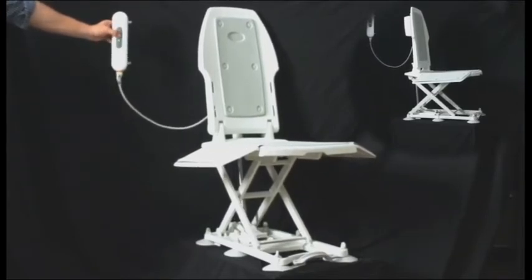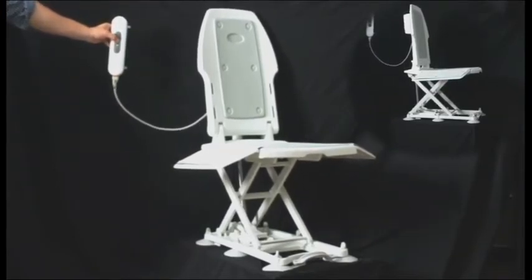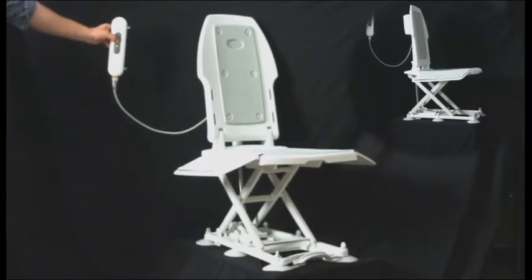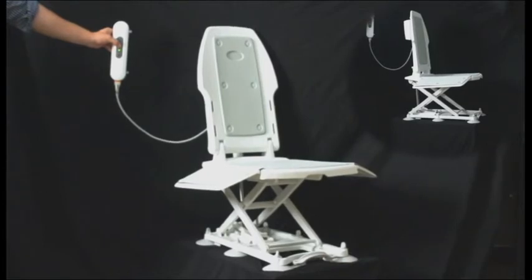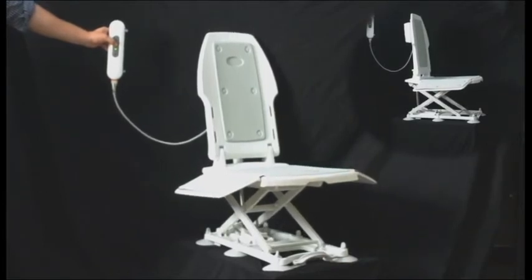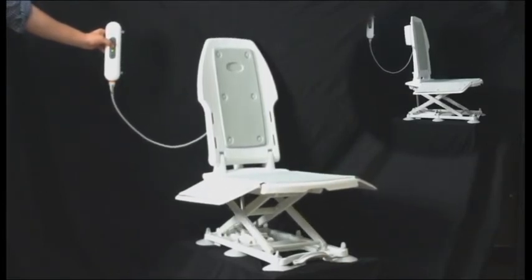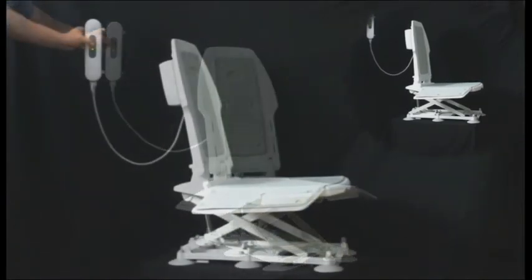The controls are simple. The up button raises the lift and the down button lowers the lift. This bath lift supports multiple reclining angles as well.